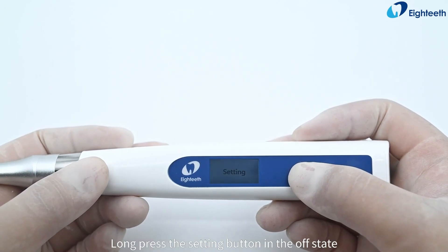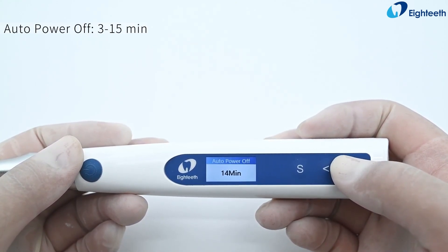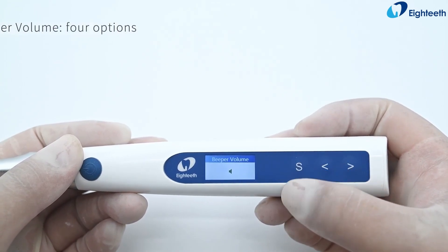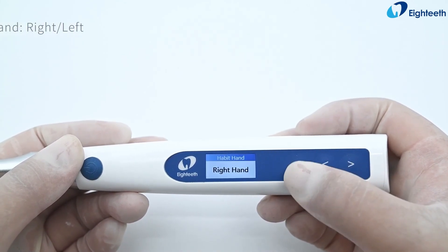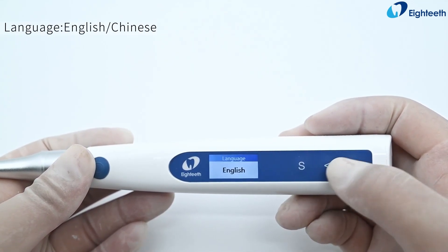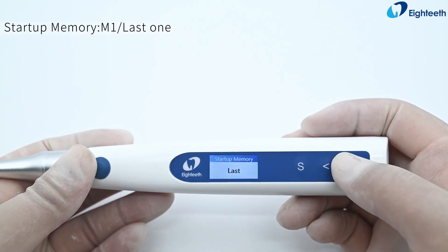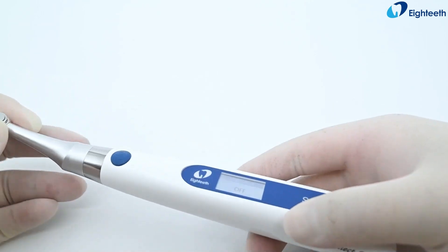Long press the setting button in the off state and then long press the main switch to enter the advanced setting mode. Note that the endo file cannot be installed on the contra angle during calibration.